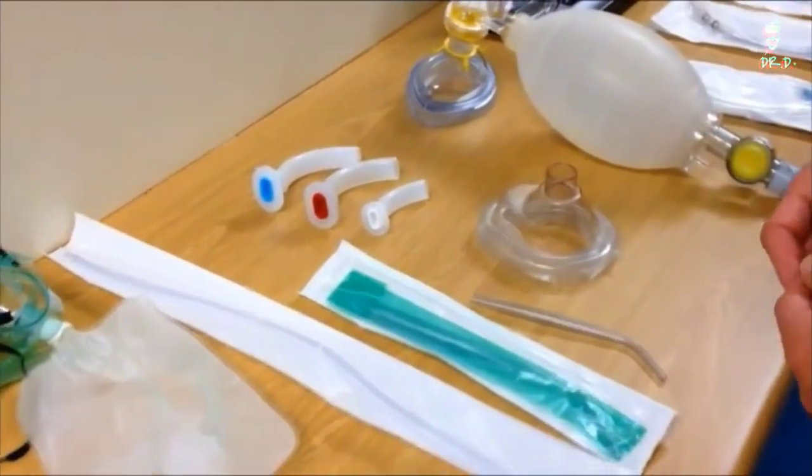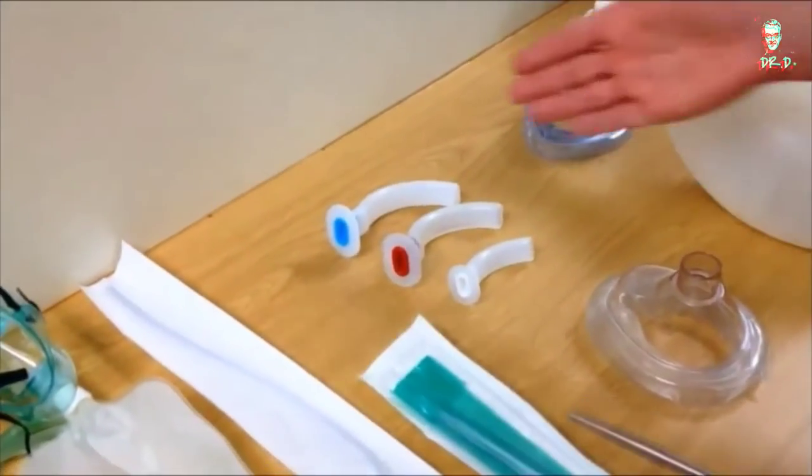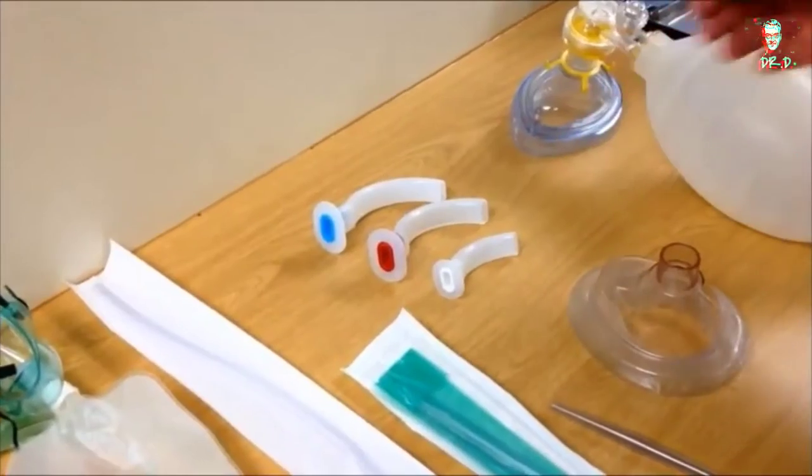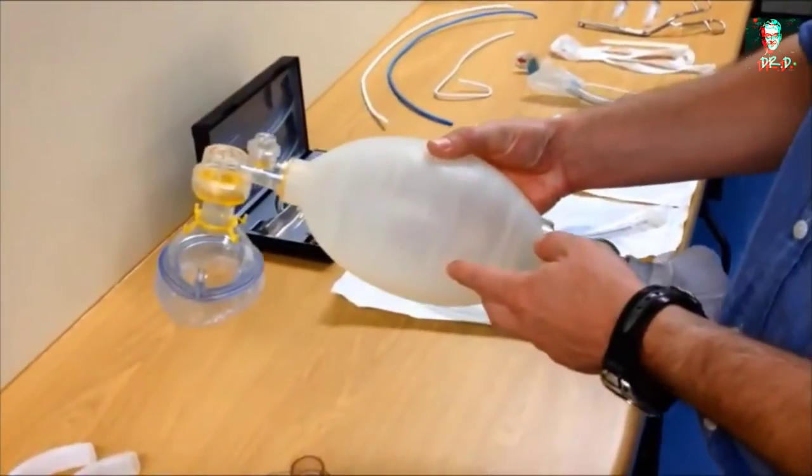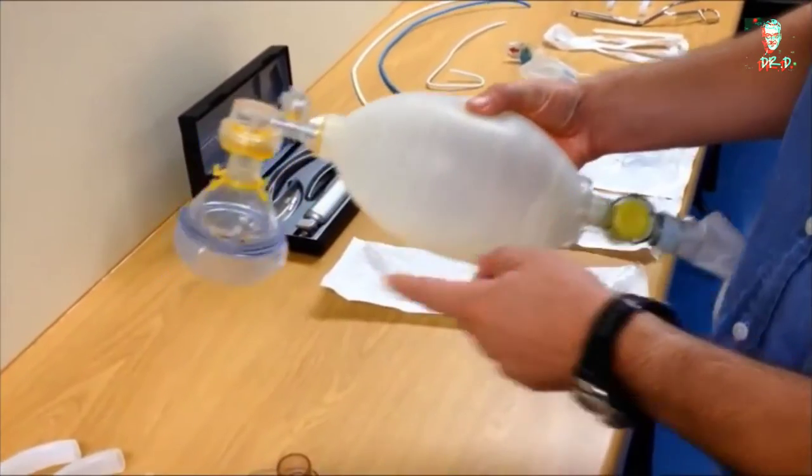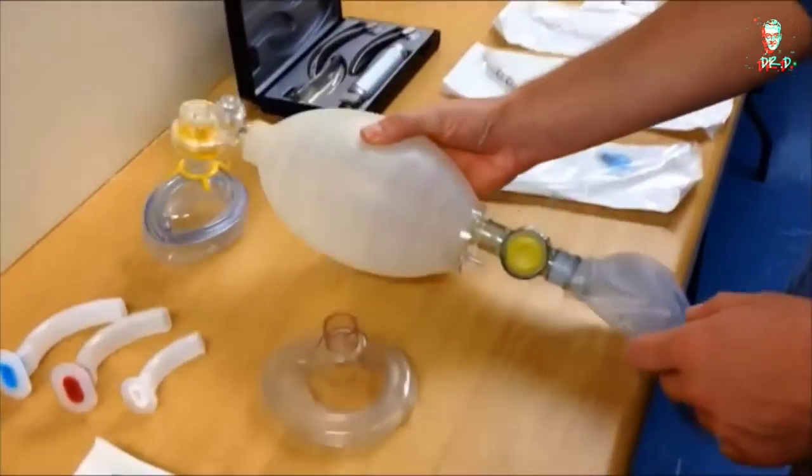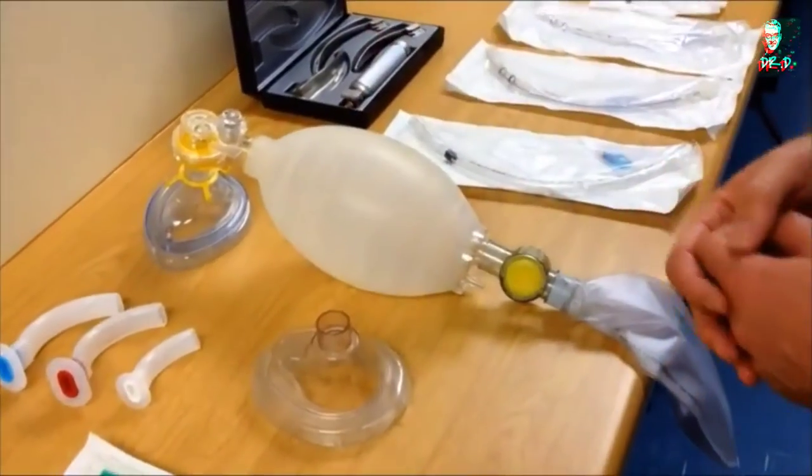You should have a selection of airway assist devices such as oropharyngeal airways, and you should have a ventilation device, in this case a self-inflating bag valve mask ventilation device with a selection of mask sizes. Your equipment should be checked and ready to use.